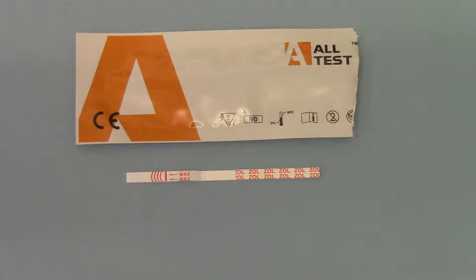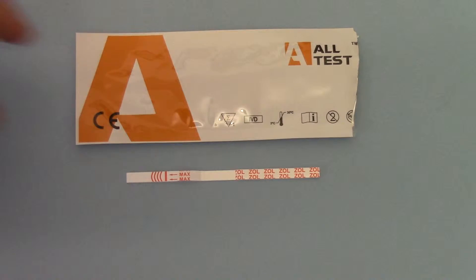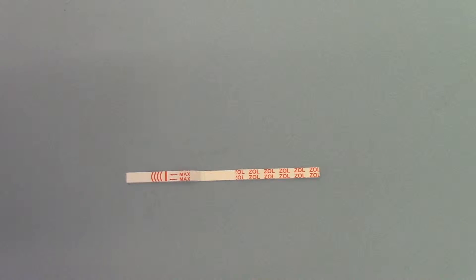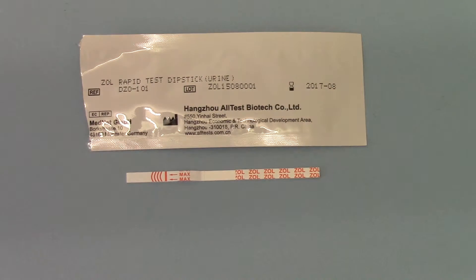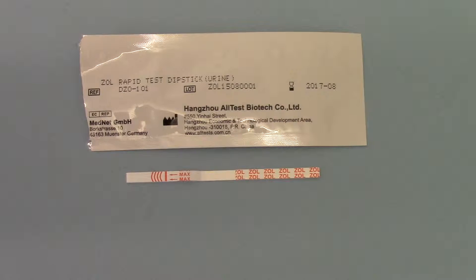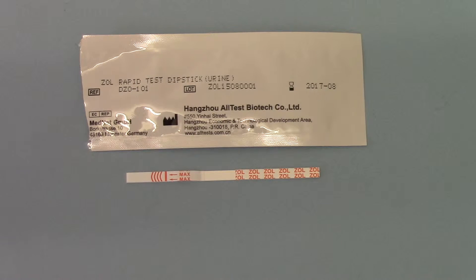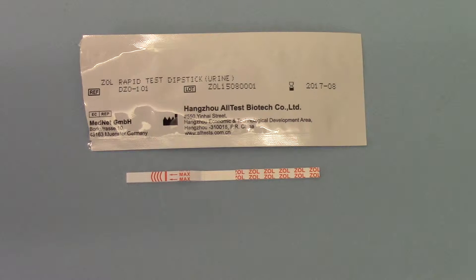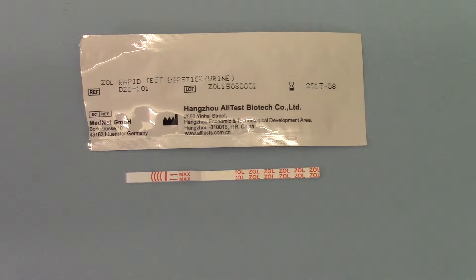Welcome to this product demonstration video for the new AllTest Zolpidem urine drug screen. This is a new membrane developed for the diagnostic detection of Zolpidem, which is a sedative tranquilizer. It's becoming the most common date rape drug and has really taken over from Rohypnol, and until this membrane was developed there was no specific test to detect Zolpidem in human urine.